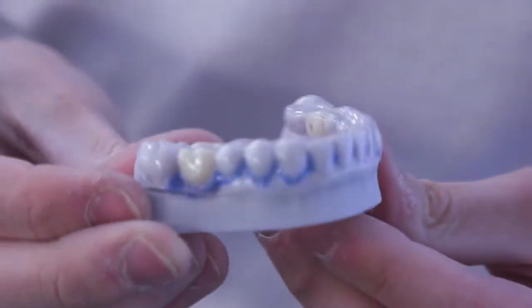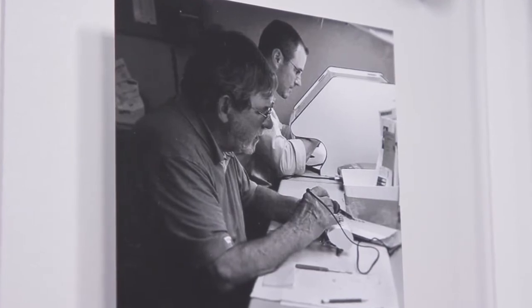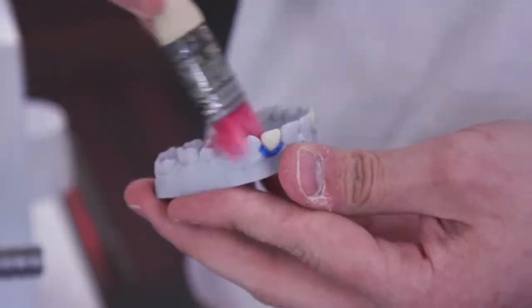Here at Neolab what we really do is we take each case and we put a personal touch on it. Neolab started back in 1976 as a family-owned organization, still is a family-owned organization, and it has grown to be a full digital laboratory.